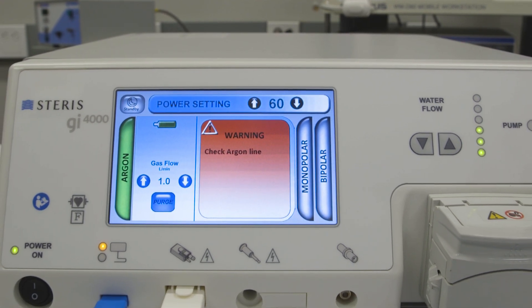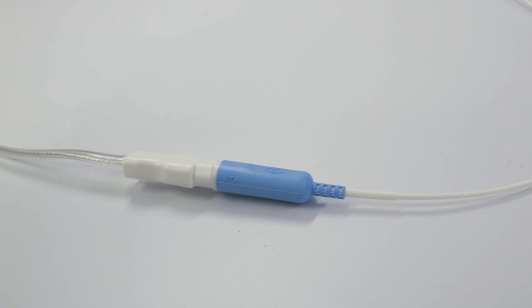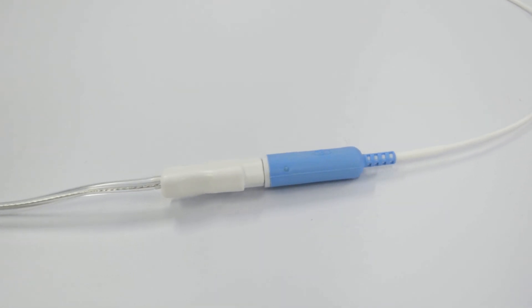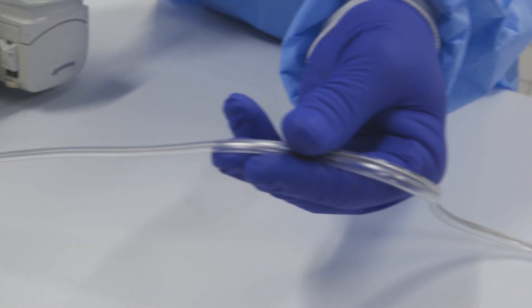To troubleshoot this issue, check all the connections of the ArcConnect argon probe connector and argon coagulation probe. Visually verify that neither of the lines are pinched, occluded, or clogged.